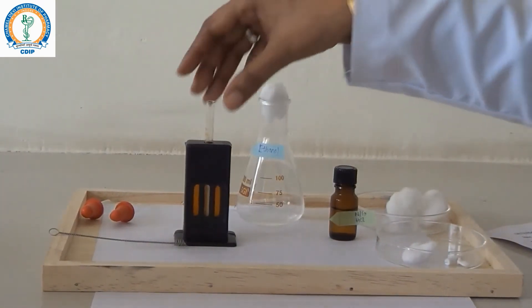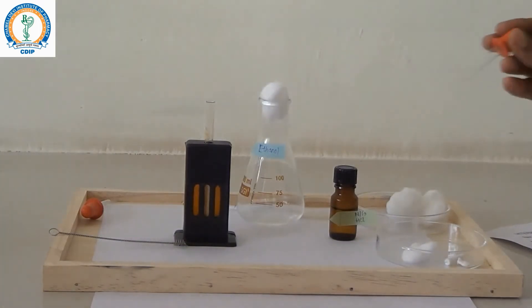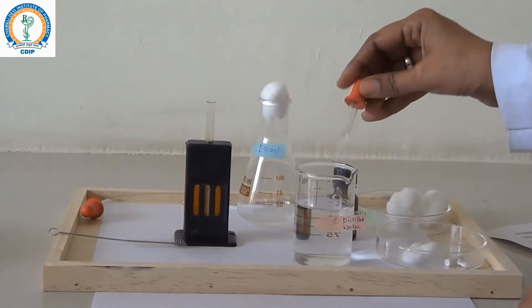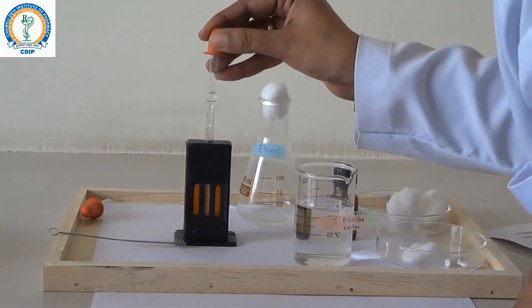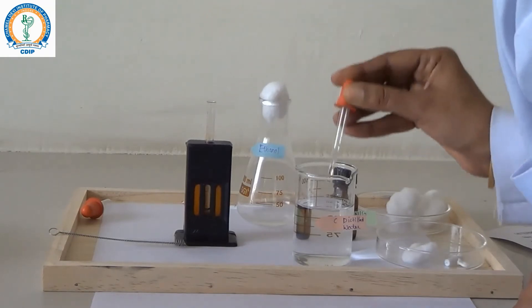Now, after placing the comparator tube, use distilled water drop by drop and add it into the graduated tube until the color matches with the comparators.